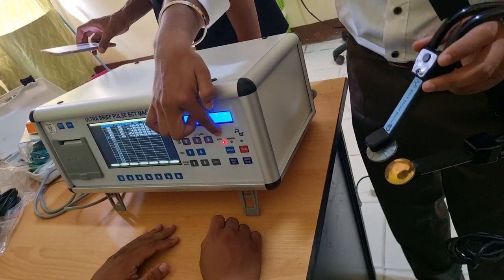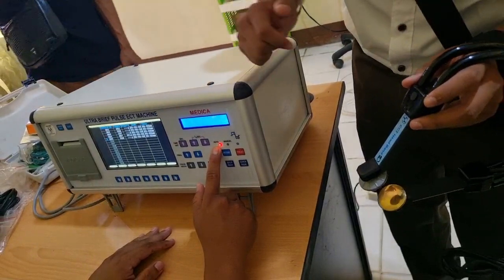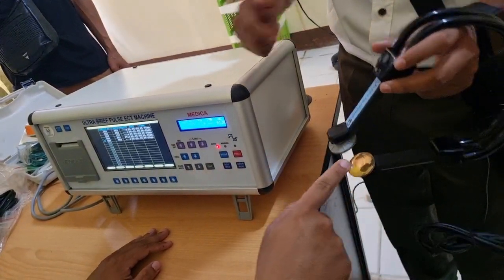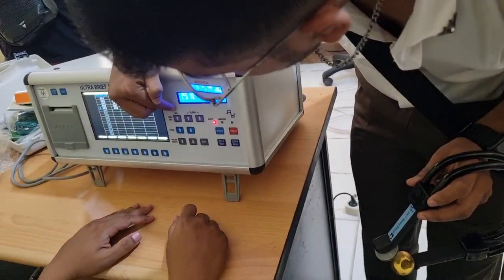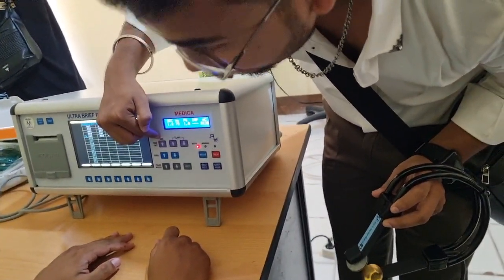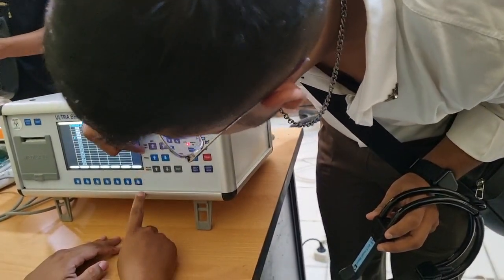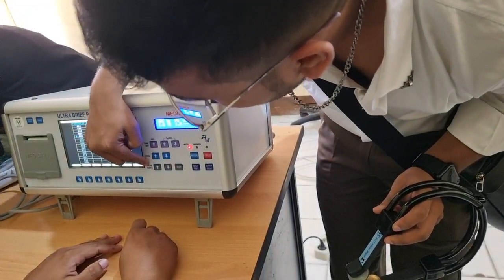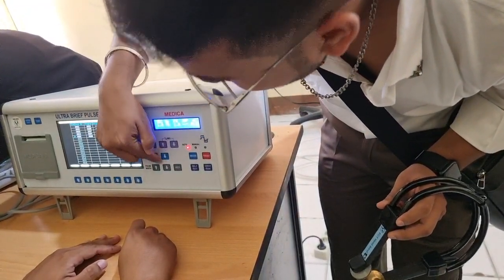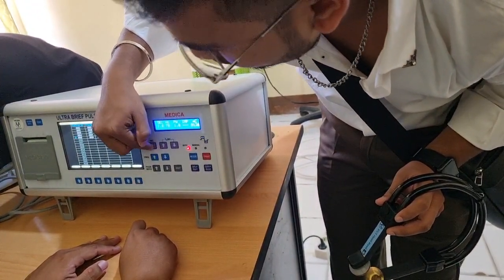We usually use the machine on auto mode. How much can you input? We have to set the input here. We will put the seconds, the time, here. Frequency, yes, we will increase the frequency. We can set the pulse width. Everything can be controlled from here: the frequency, the width, and the current.